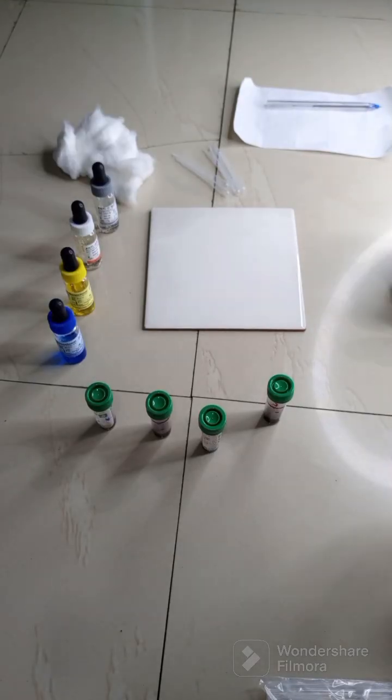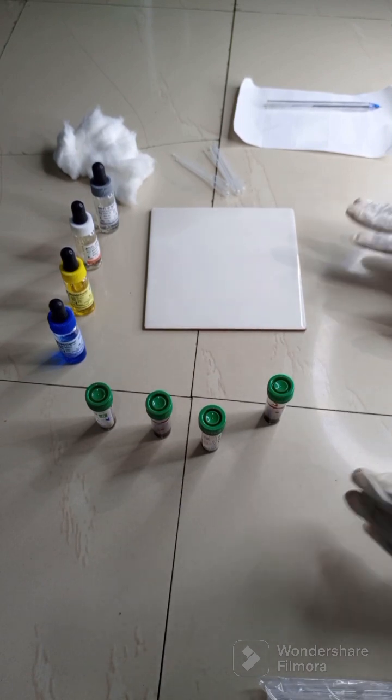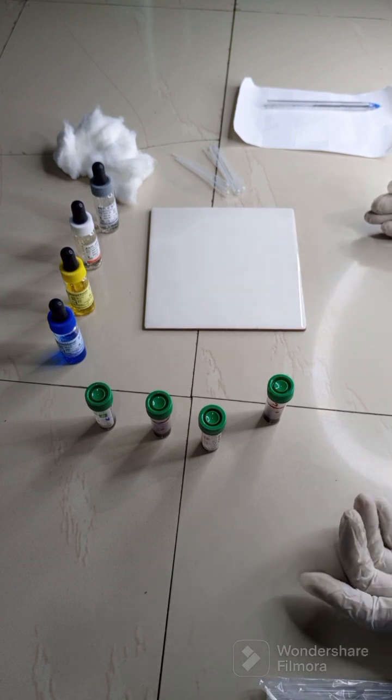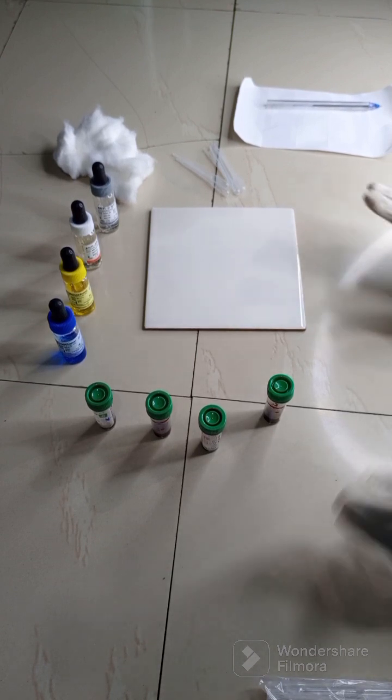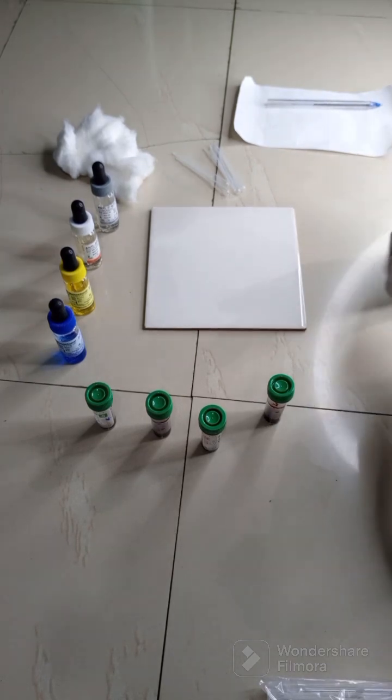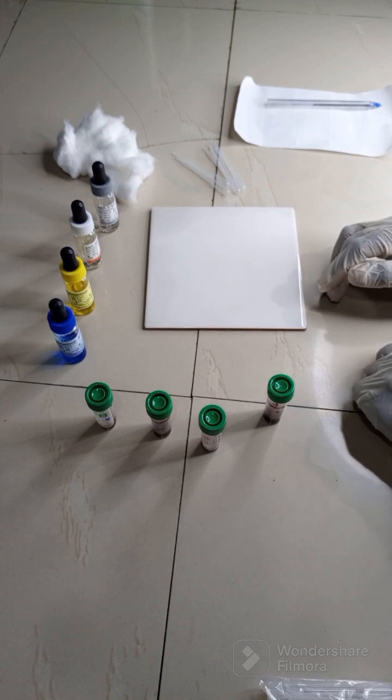In this tutorial, I'm going to teach you how to efficiently carry out ABO blood grouping. There are two methods for ABO blood grouping, the tube method and the tile method. The tile method is also known as the emergency ABO blood grouping.